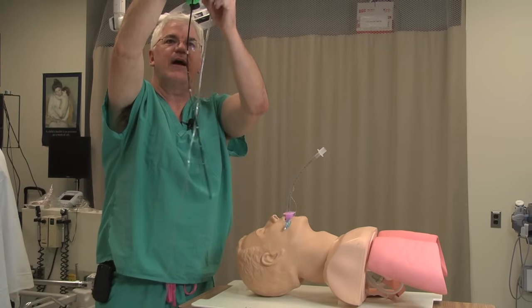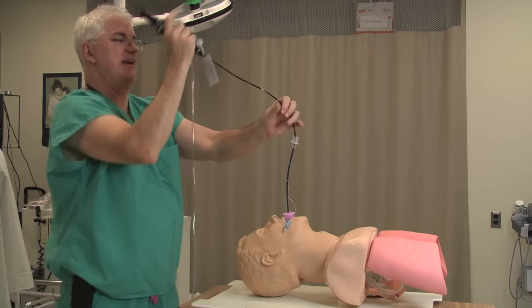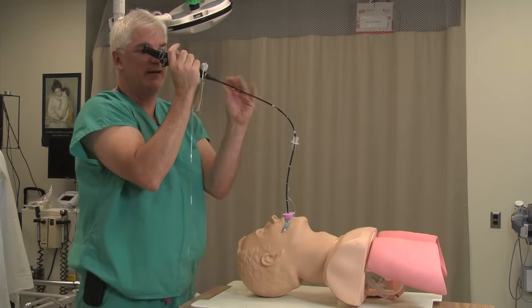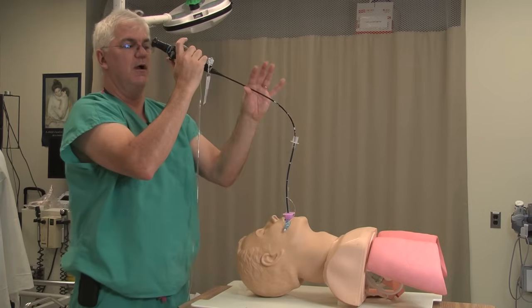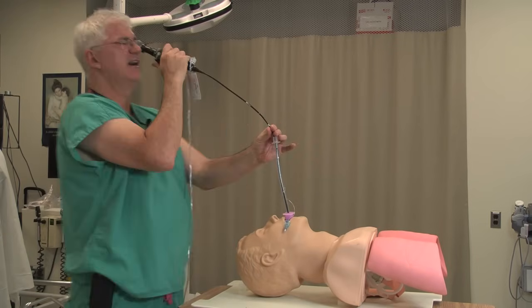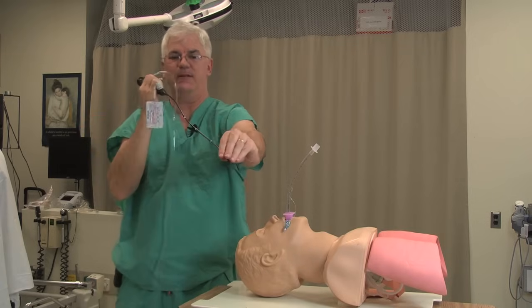Keep in mind, a fiber optic is a lot of little fine glass cables. If I put this in and I'm wrenching it this way and that, I'm going to pop some of these little fiber optic cables, and pretty soon you won't be able to see very well. So one of the things I do is if I need to turn, I turn my entire body — I turn my entire body so that I'm not placing any strain on this. If I just twist my wrists, I'm going to be popping these things.